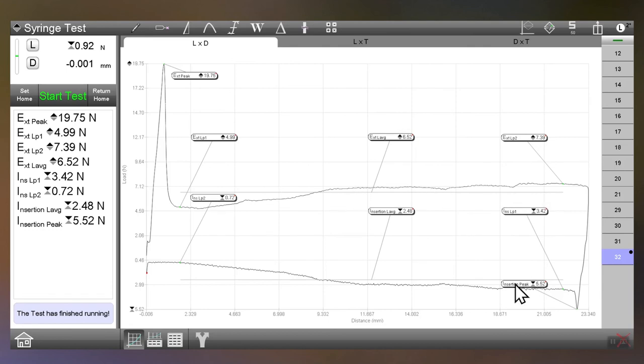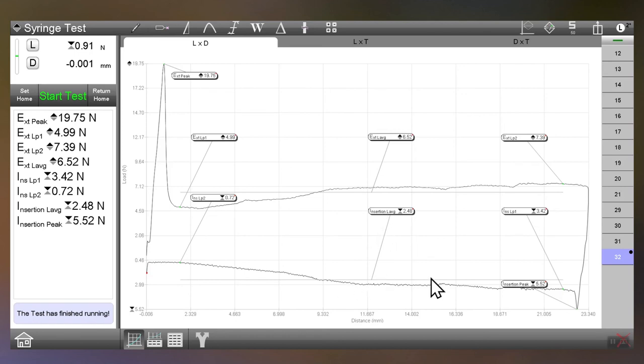Also did the same thing here. We have two points, one and two here. And this is our insertion data as we're inserting it back in there.